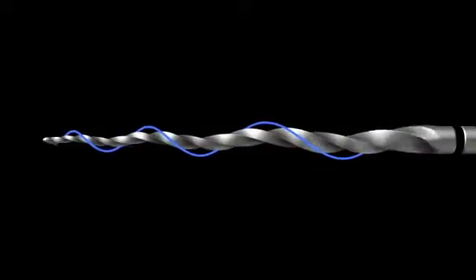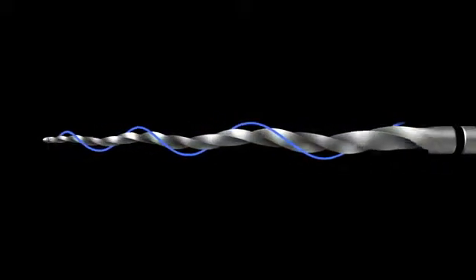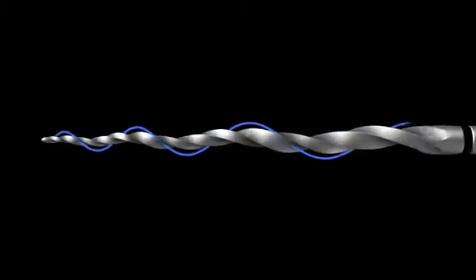Follow the blue sine wave to see where the file is contacting the canal walls, and just as importantly, where the file is not contacting the canal walls.